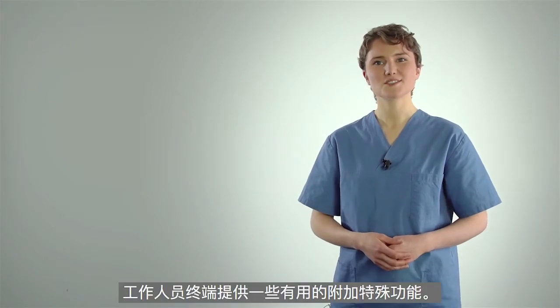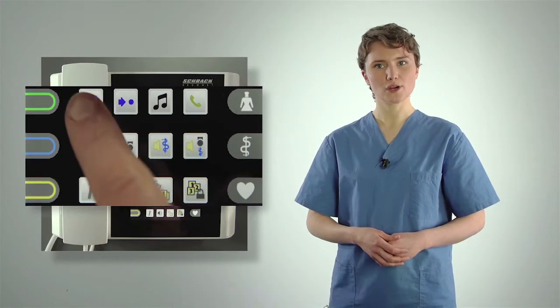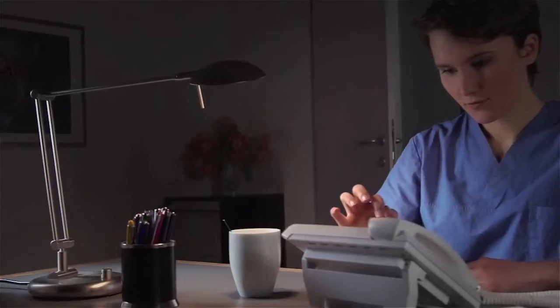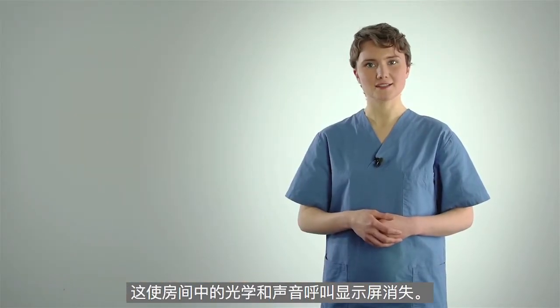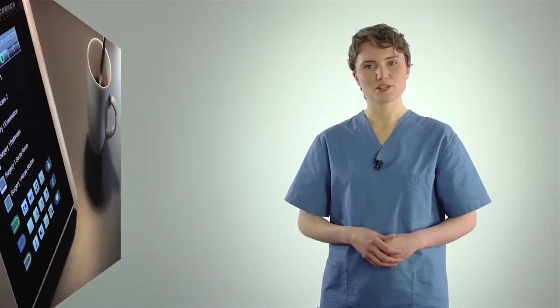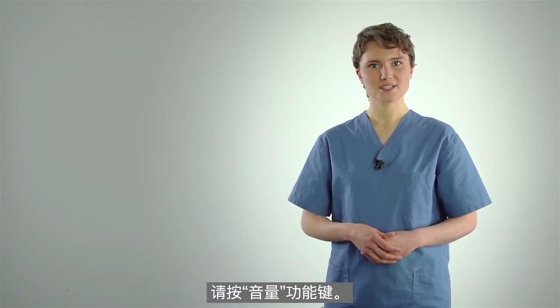The staff terminal offers some useful additional special functions. To manage the calls of a neighbouring ward, activate the interconnection function by pressing the button and then select the desired ward from the list above. During the quiet night hours, you can activate the centralization function, which silences the optical and acoustic call displays in the rooms. Please confirm the centralization function after selecting it. If more information is available than can be displayed, swipe vertically on the display to see more information on the next page. To adjust the volume to your needs, press the volume function button. You can set different volumes for various functions by swiping.